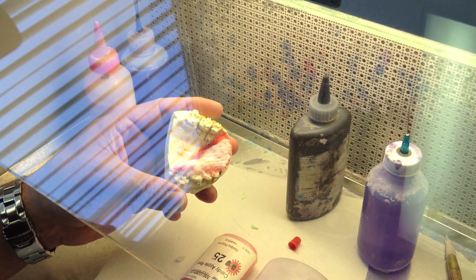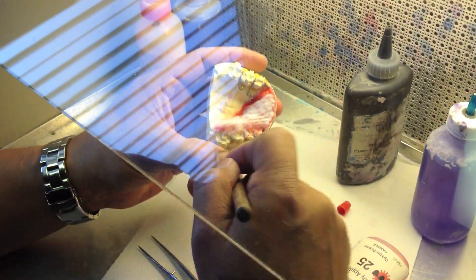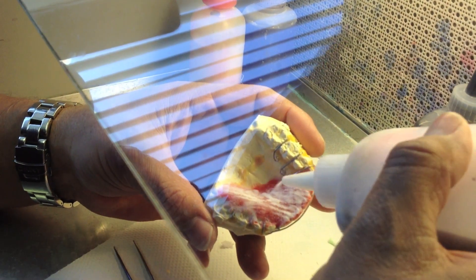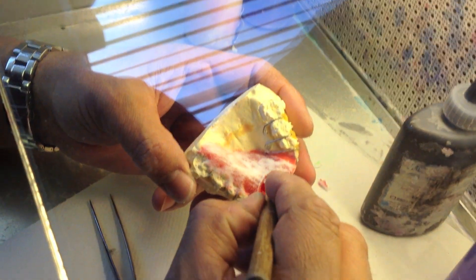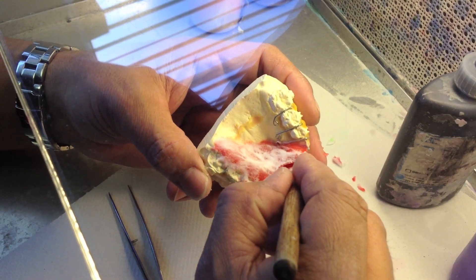He makes it nice and thick so that in the grinding process you'll grind off that top layer anyway. You'll grind down to the middle depth of the trenches so you get a nice sharp definition between the two colors, and that way you can do this in one step.